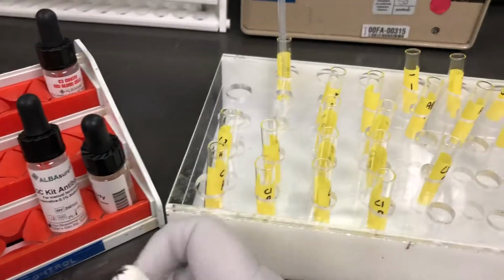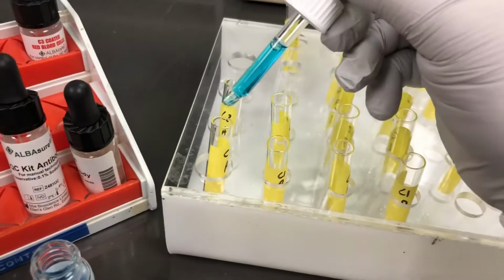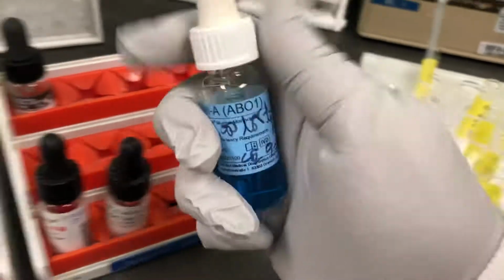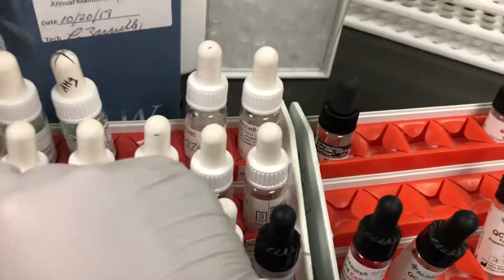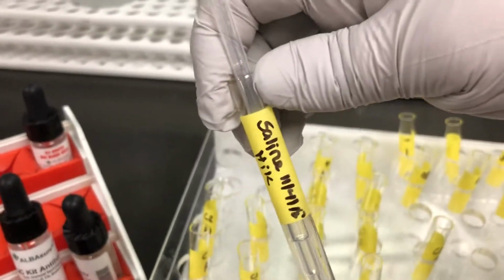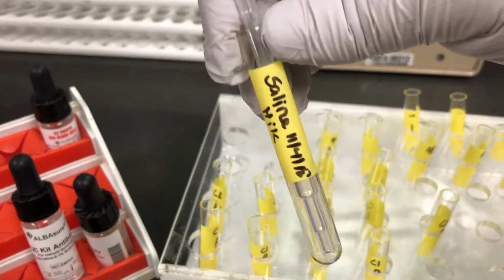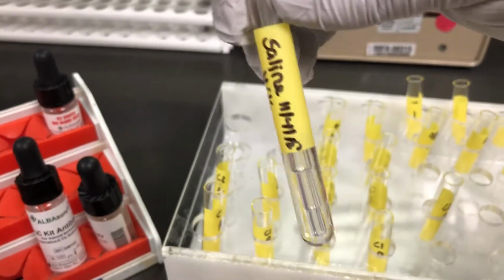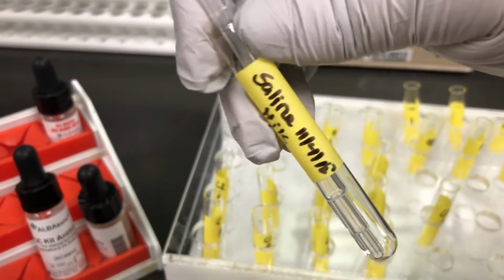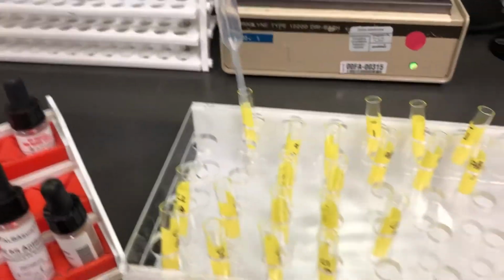So then I'll show you the first row of QC, where you just take your anti-A reagent, 1 drop, close it up, make sure that you close it up real tight. Another thing that we want to make sure that you do is when you have saline prepared, you want to never ever pipette into an unlabeled anything, anywhere in the lab. Never transfer a fluid that's unlabeled. So as you can see, saline, date, and my initials, and I'll toss this at the end of my shift, or sometimes I randomly toss it anyway.